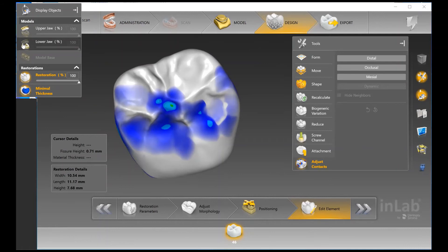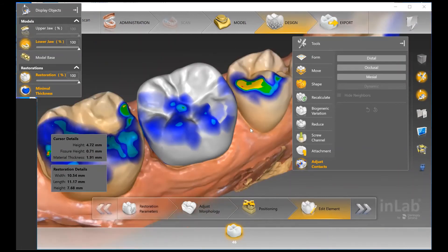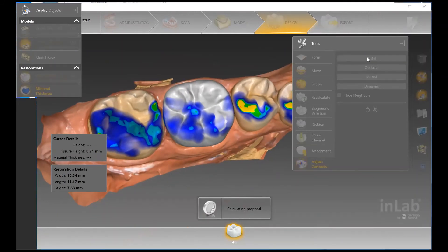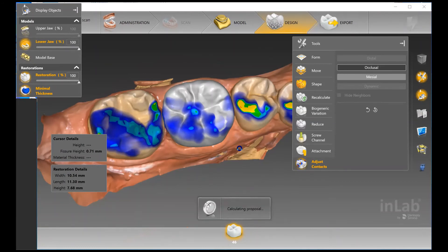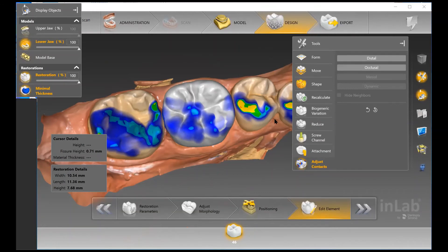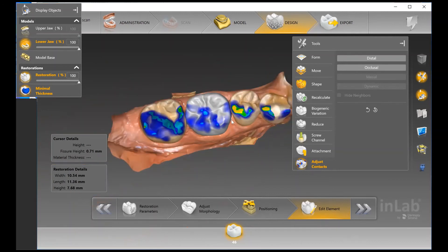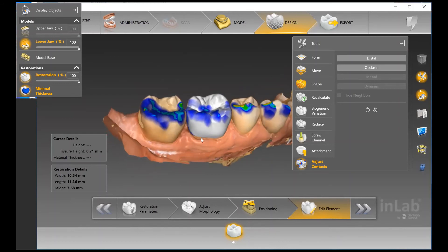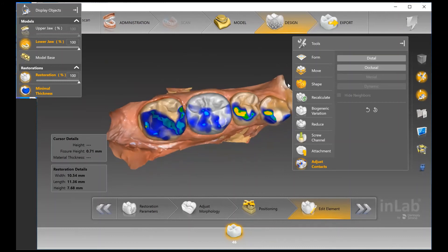I'm going to bring my lower jaw back and look at adjusting my contacts. When you select Distal or Mesial, the software tries to create those contacts to fit your parameters, either increasing or decreasing the surface area automatically. Dynamic was grayed out because we need to use the virtual articulator to get all the dynamic function first before proceeding with dynamic automatic adjustments.